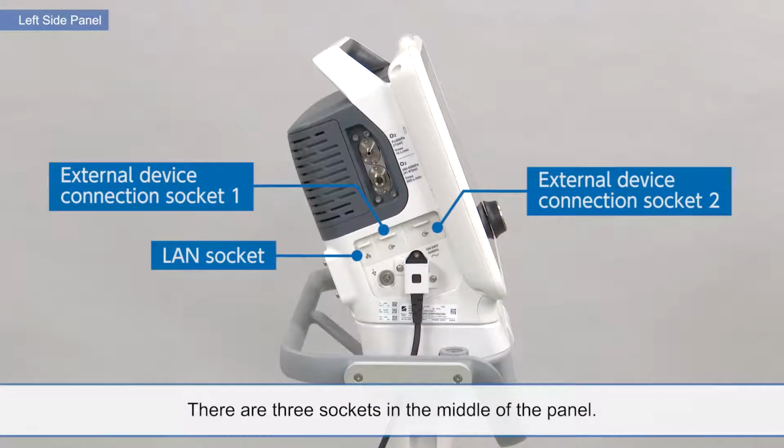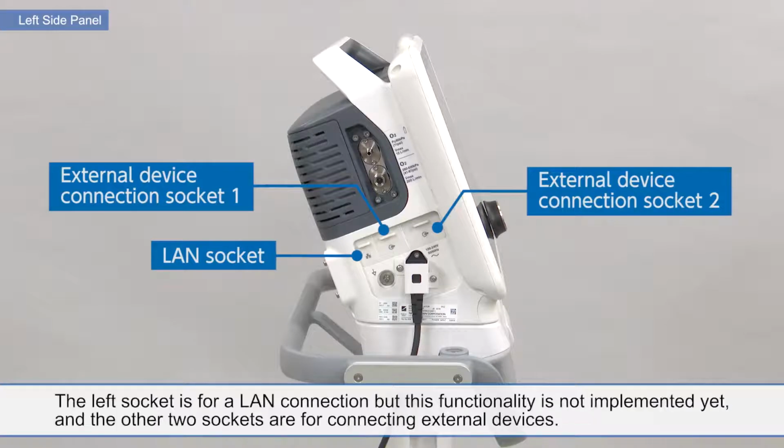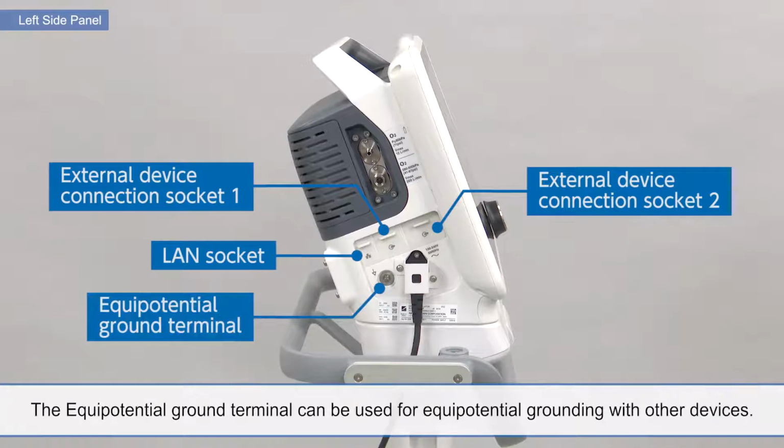There are 3 sockets in the middle of the panel. The left socket is for a LAN connection, but this functionality is not implemented yet, and the other 2 sockets are for connecting external devices. The equipotential ground terminal can be used for equipotential grounding with other devices.